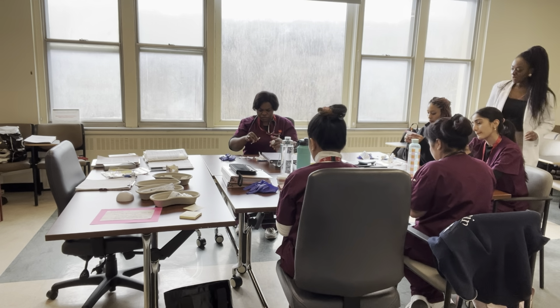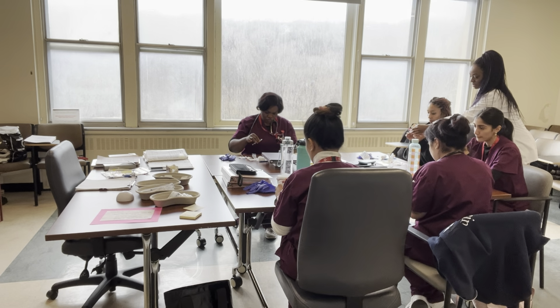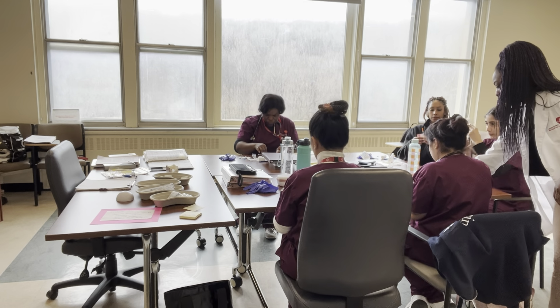Good. So if you do it that way, put it in the middle, just as long as it's beneath. Yeah. So as long as it's beneath the number. There we go. Excellent. As long as it's beneath the number, way beneath. Why would you put it on the line, darling? Way beneath where you're gonna go.